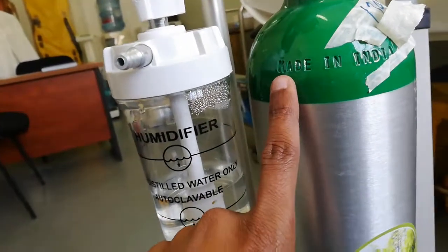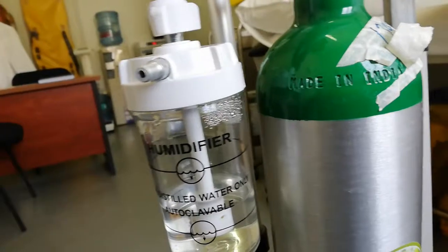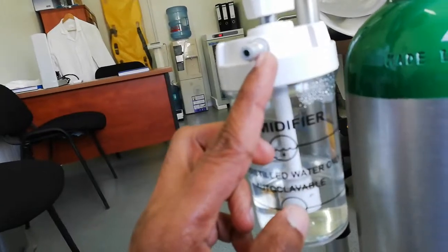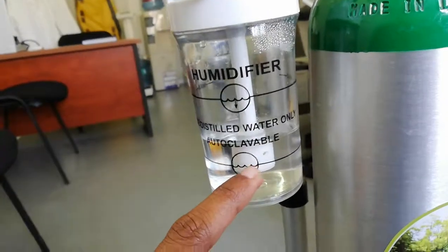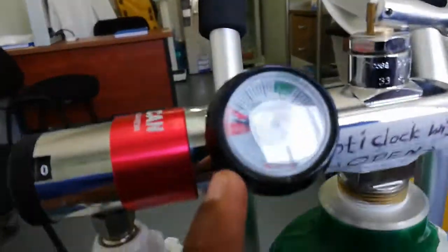We have paint on the top of the cylinder. This is the humidifier. This is the pipe. This is distilled water — this is the lower range and the higher range.